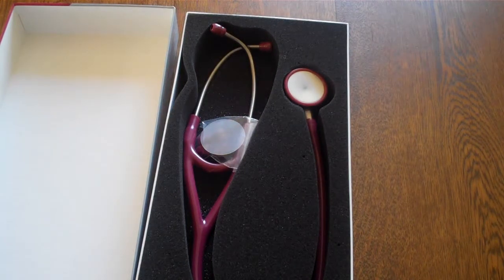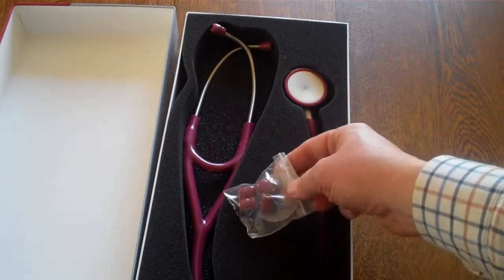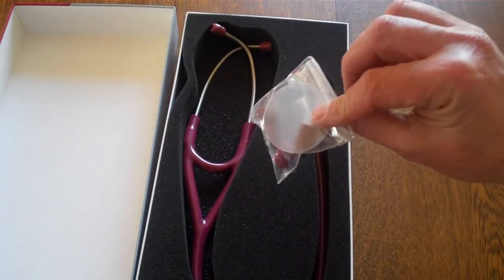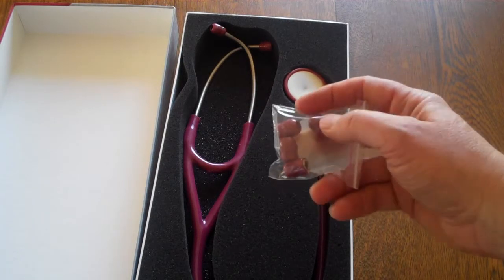You'll see, packed in a foam retainer, you have a bag of spares, which in this case is a spare diaphragm, and a variety of ear tips in different sizes.